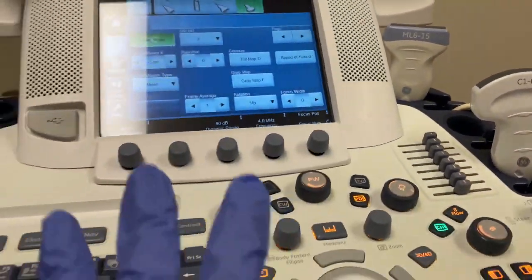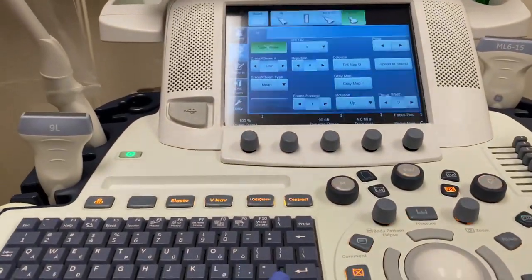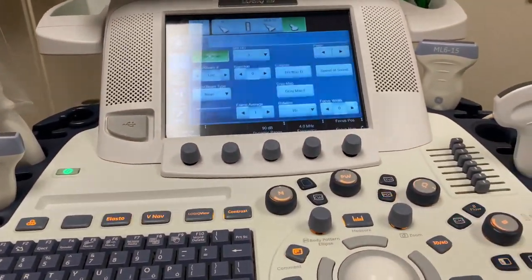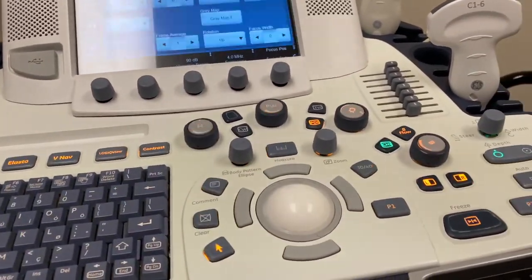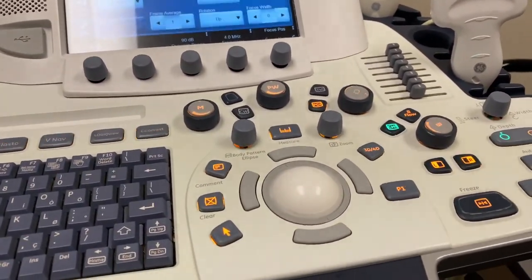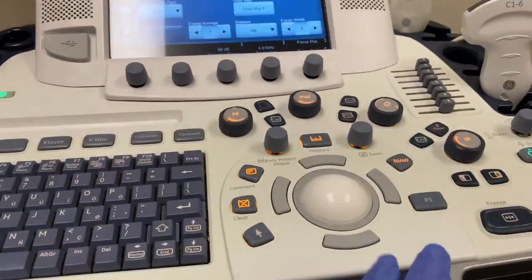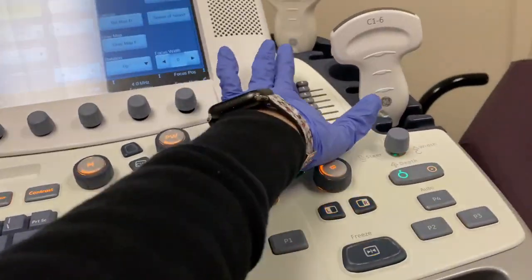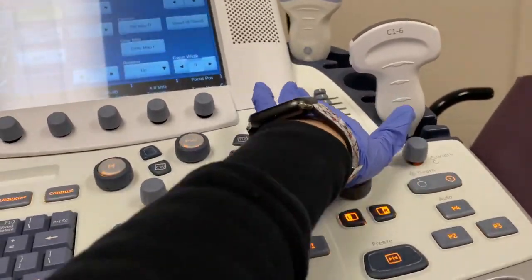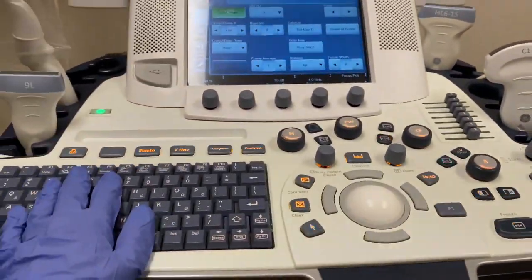So just get used to the machine that you are practicing and learning on, and then when you get a new machine, practice on that one and think about, how did I do it on the other machine? Oh, okay, that's what I did. So it's a lot. You just need practice, you need time. Don't get frustrated, because all of the buttons are on every single machine. You just have to get used to it.